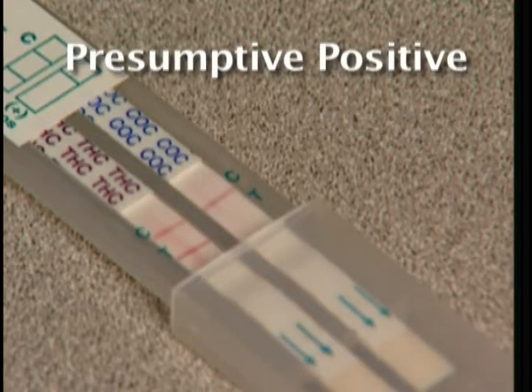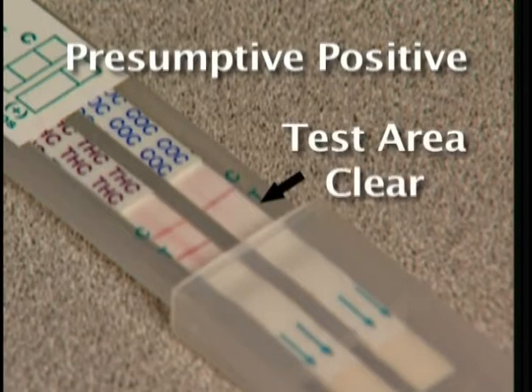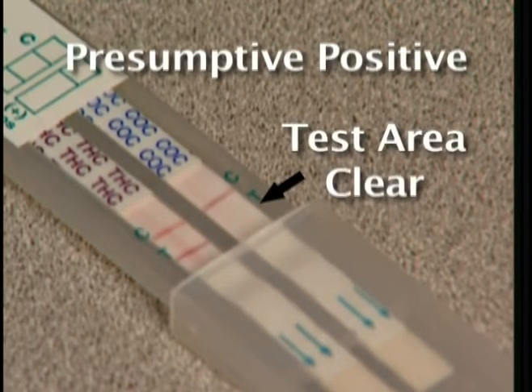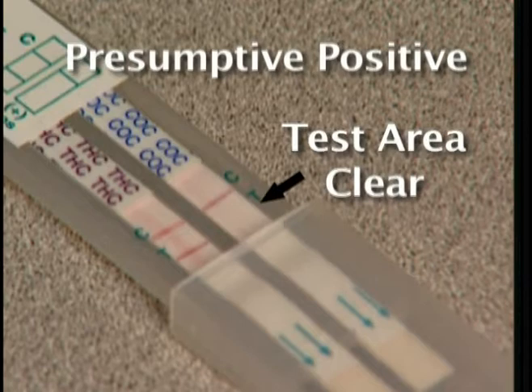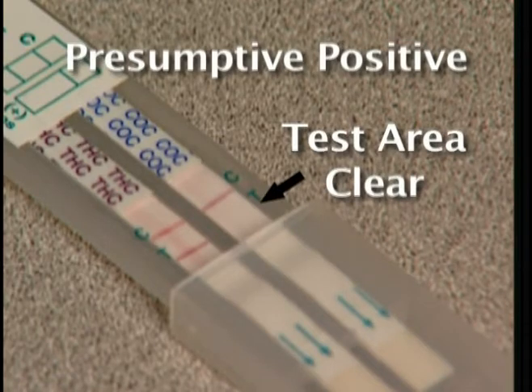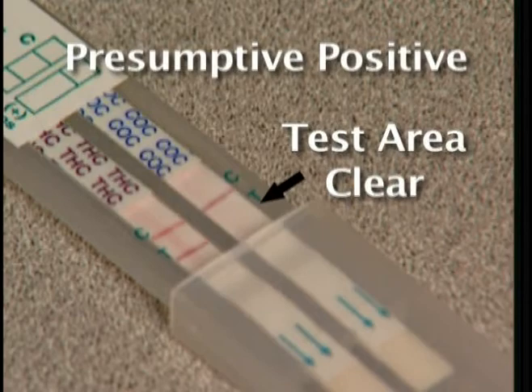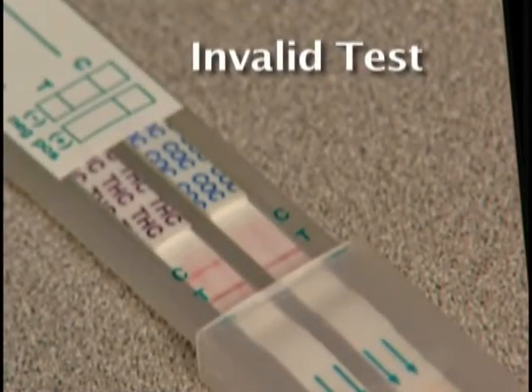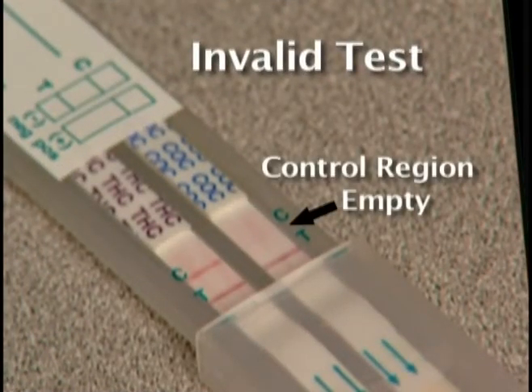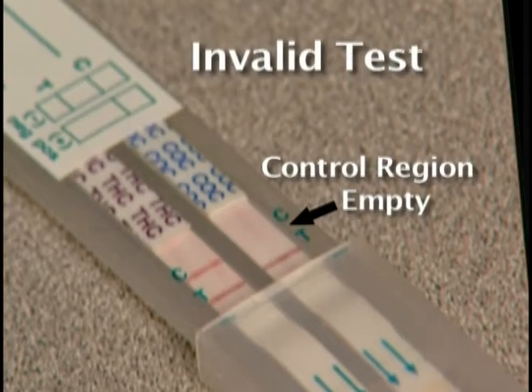A presumptive positive result will show no band in the specific test area. Results are stable and may be interpreted for up to 1 hour after the control bands C form. When no band appears in the control region, the test is invalid, even if there is a band in the test region.